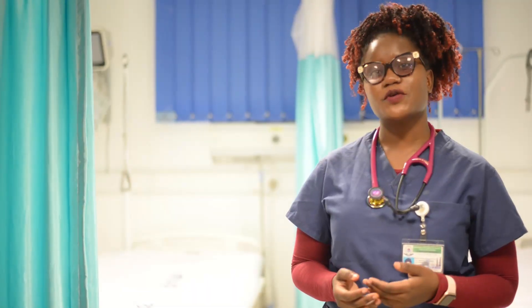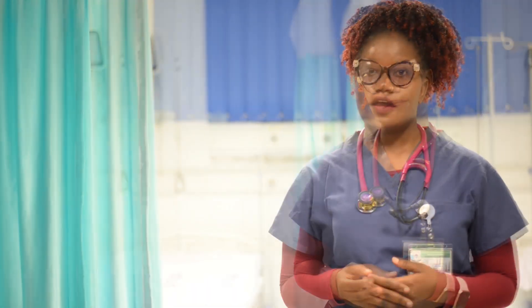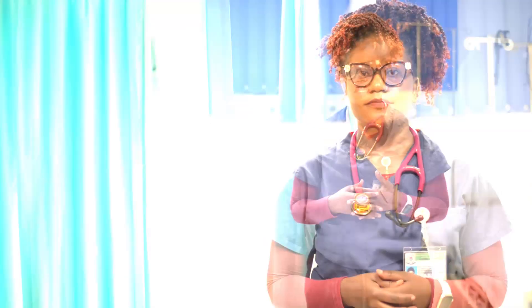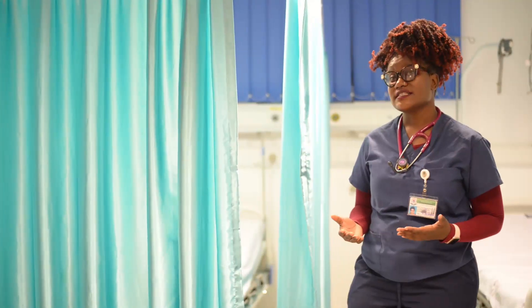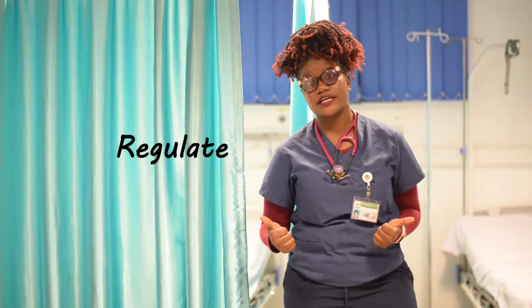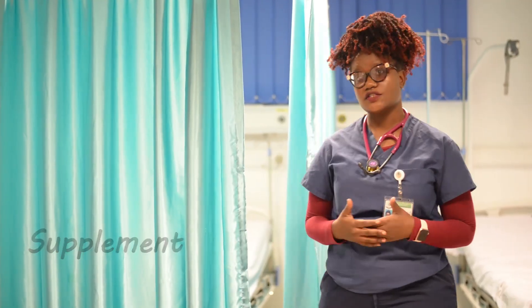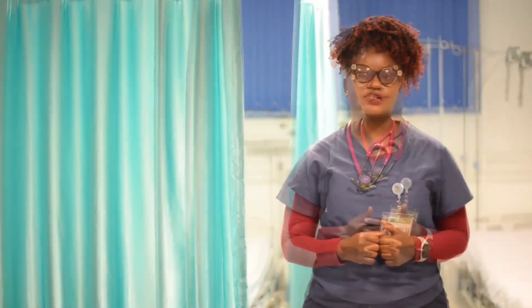Greetings, welcome to hypoxia management in the EMD. I'm going to talk and show you different oxygen delivery devices that are used in the EMD. Oxygen delivery devices are used to either administer, regulate, or supplement oxygen in patients with hypoxia.